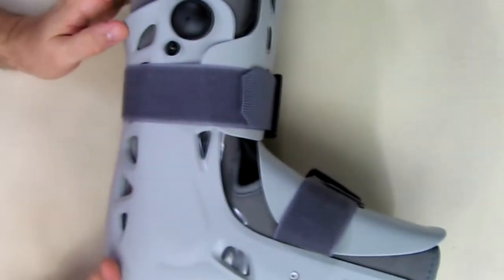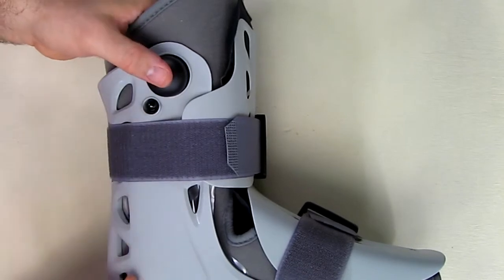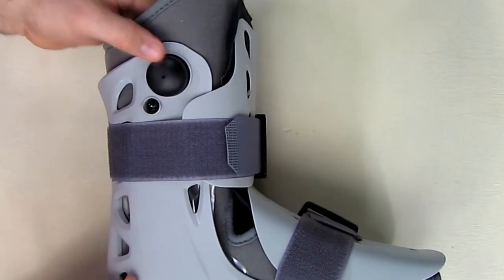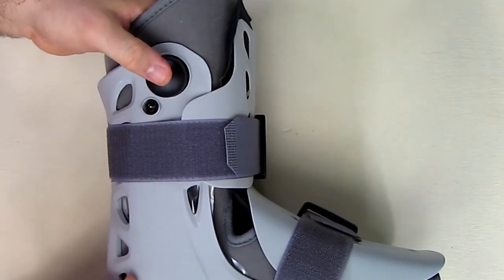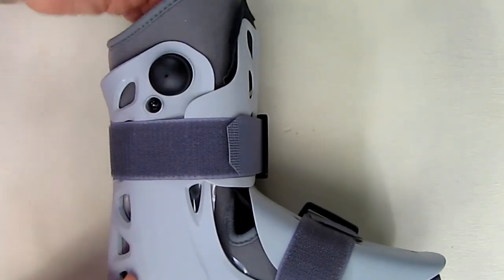Going over the valves on here: there is a little porthole right there. When you push the valve, you don't want to push it on the side — you want to cover that porthole just like that. Then let it breathe and push like that.